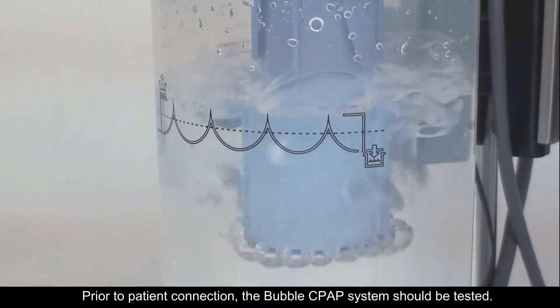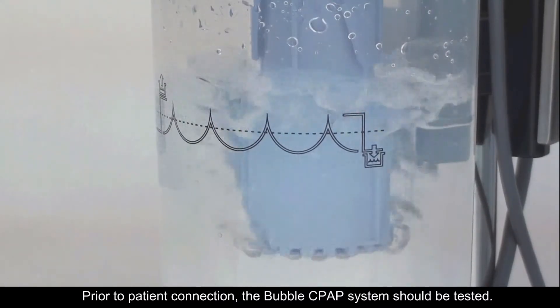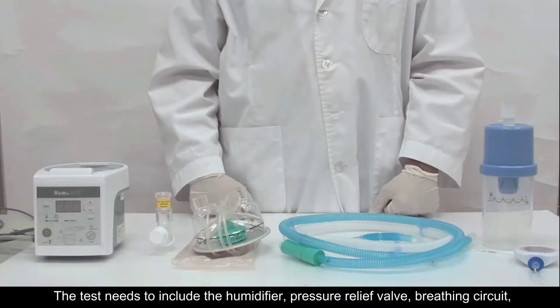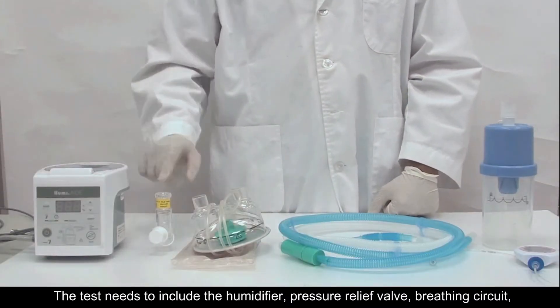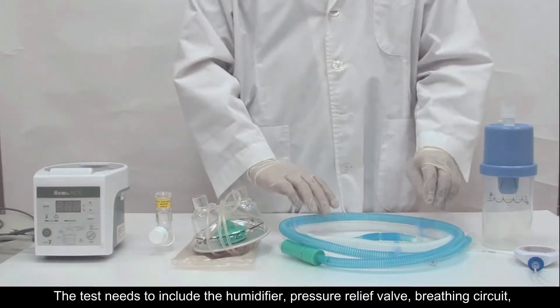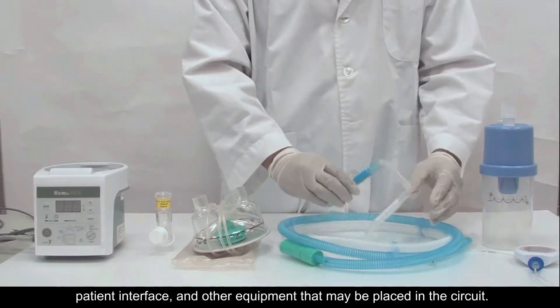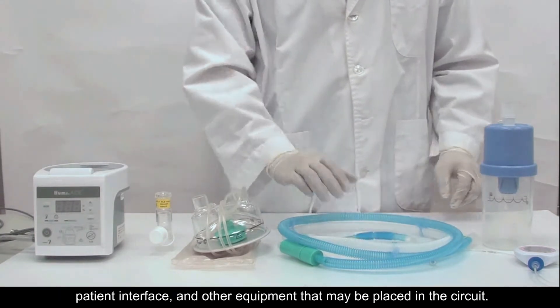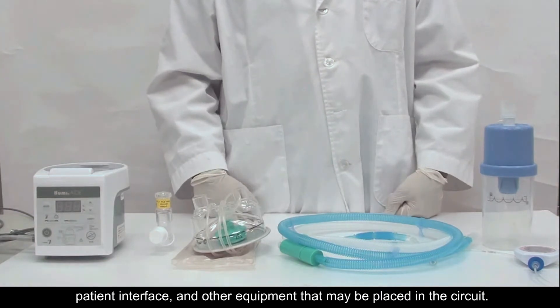Prior to patient connection, the bubble CPAP system should be tested. The test needs to include the humidifier, pressure relief valve, breathing circuit, patient interface, and other equipment that may be placed in the circuit.